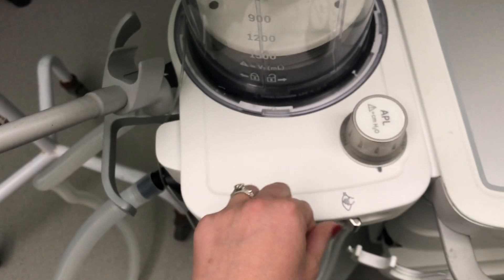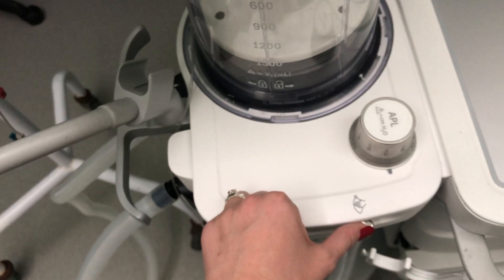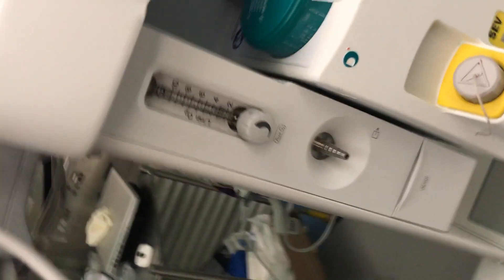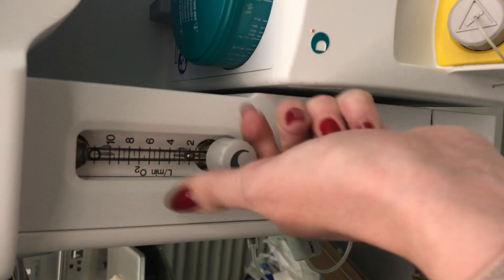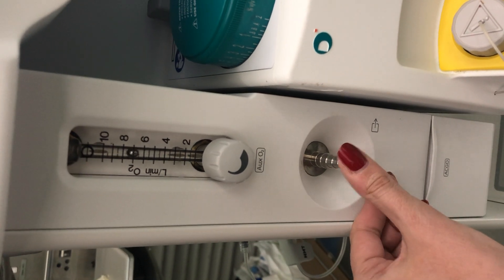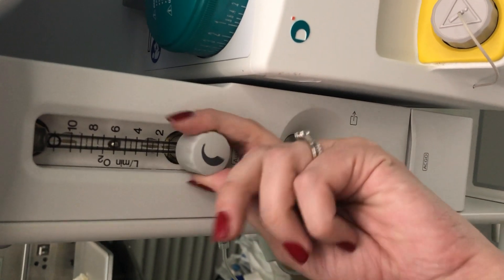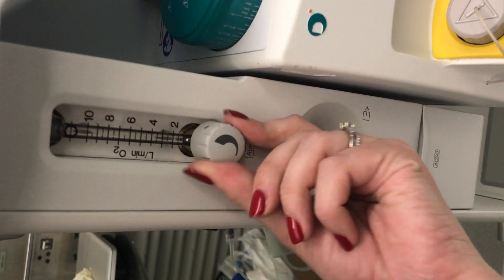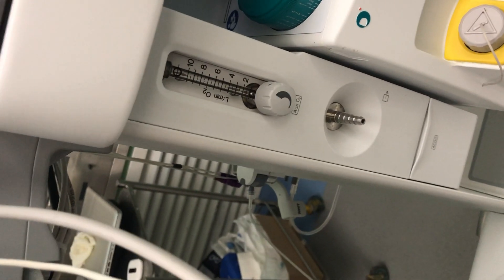On the side of the machine there is an extra way to give oxygen to the patient. Opening this port allows oxygen to flow out, and you can attach an ambu bag, nasal prongs, or face mask there — it's just an extra way of giving oxygen to the patient.